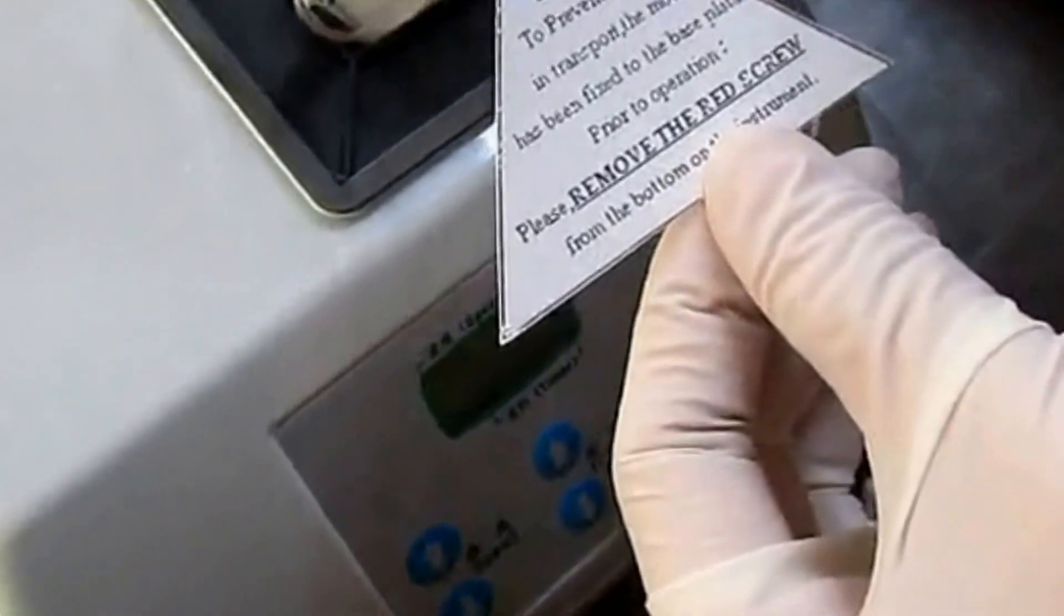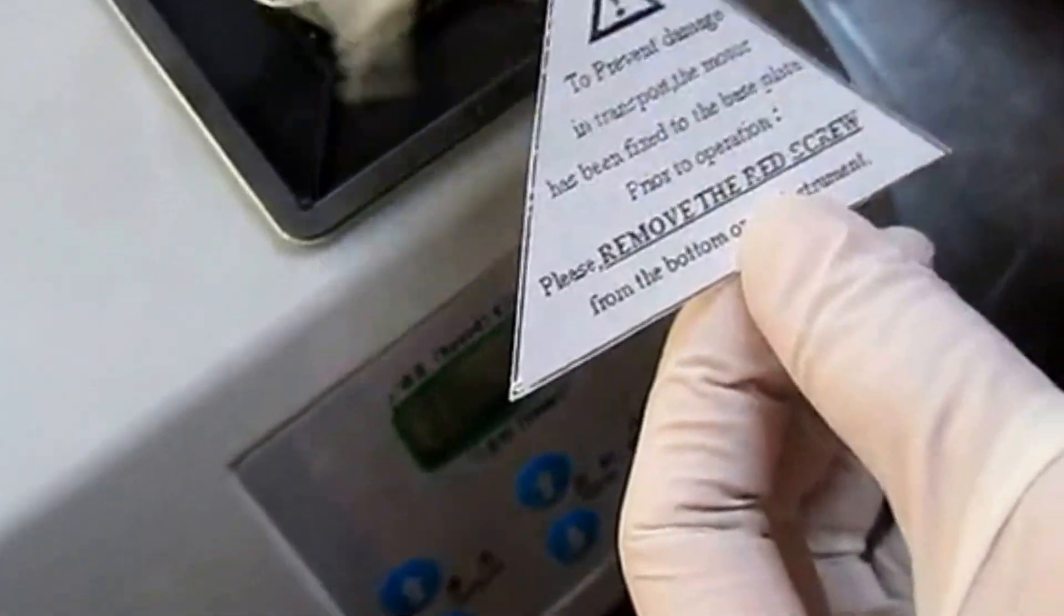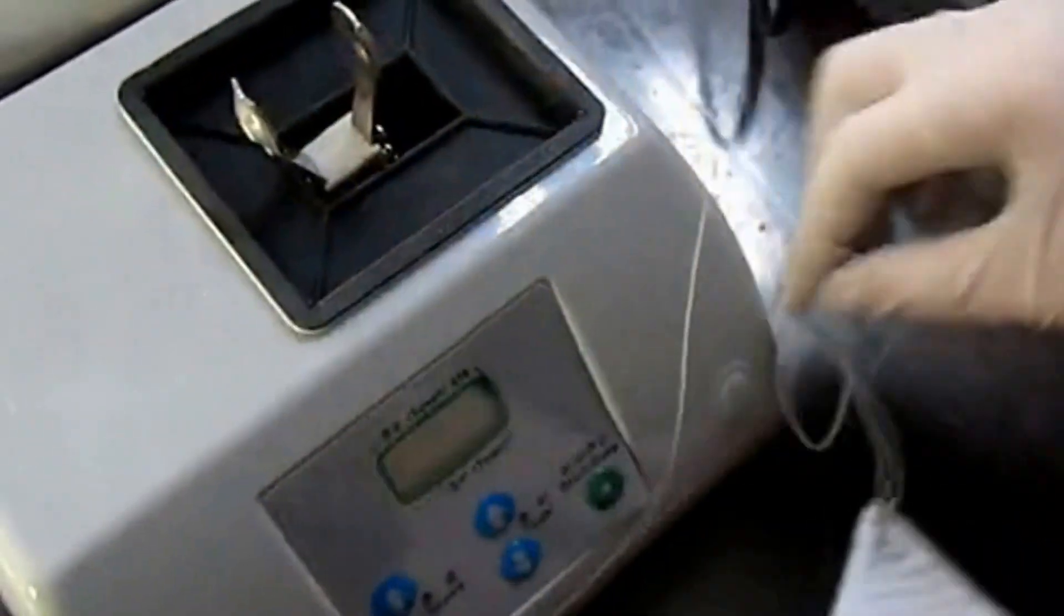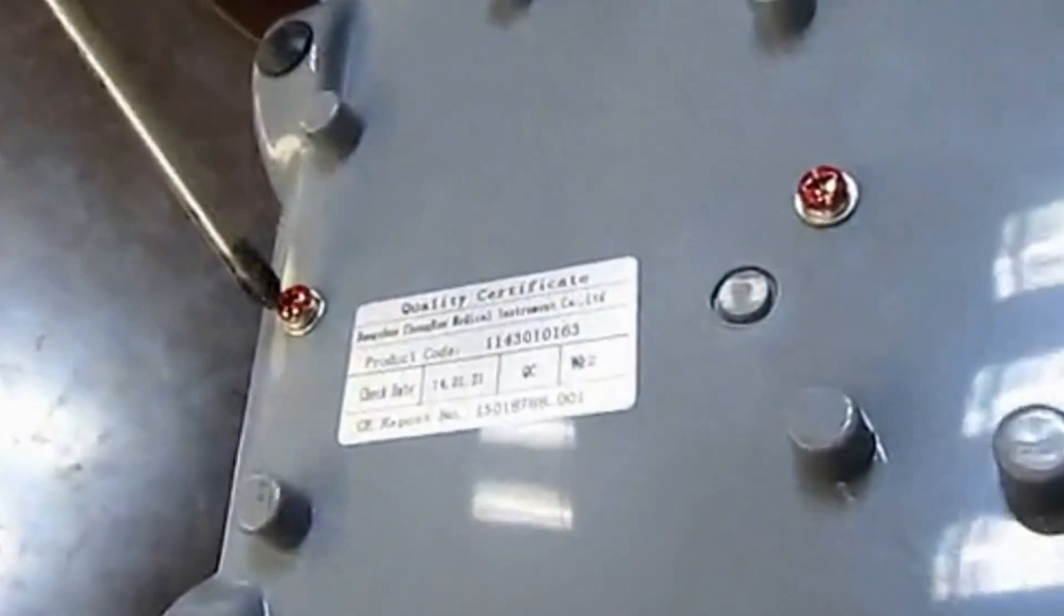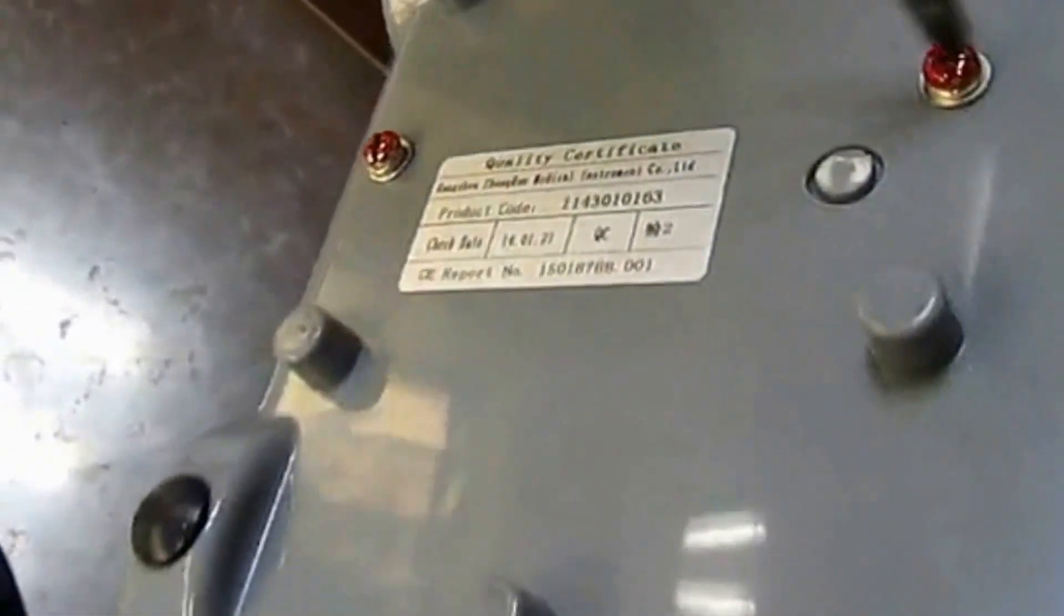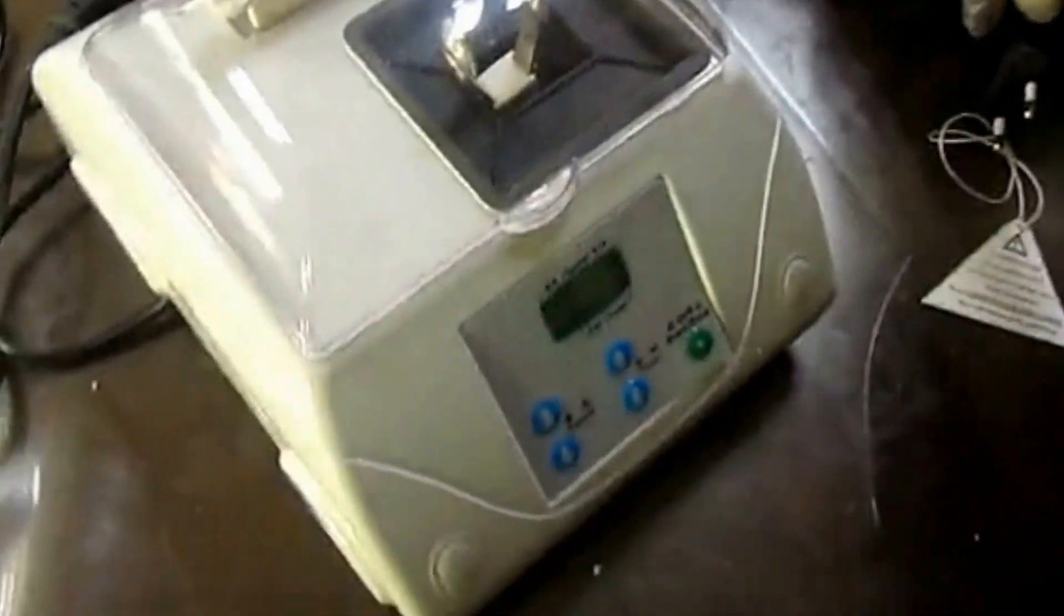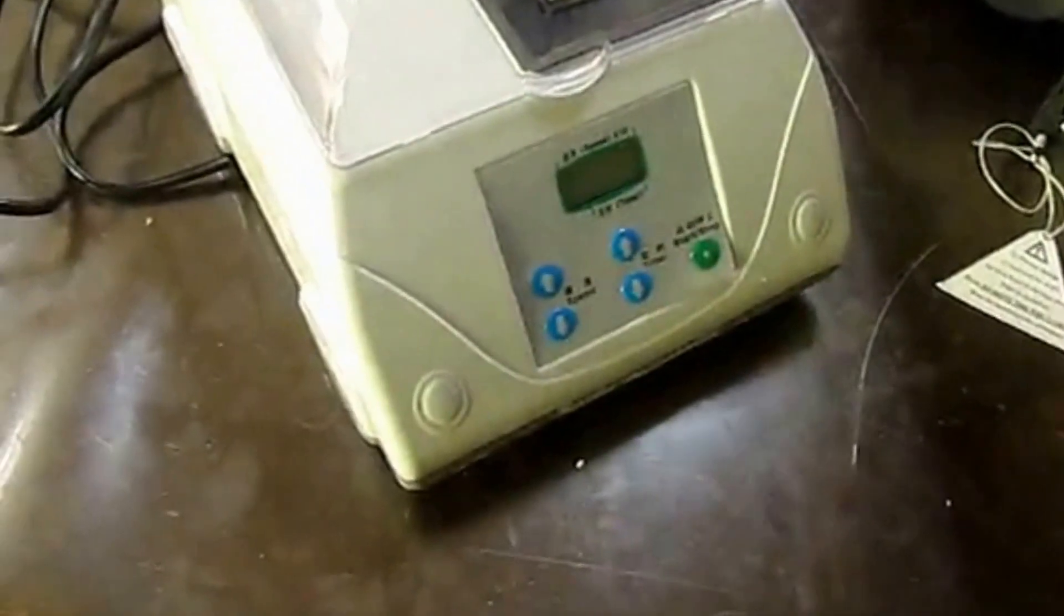The screws used for fastening under the device must be removed before use. If transportation is needed again, the screws must be fixed back under the device.